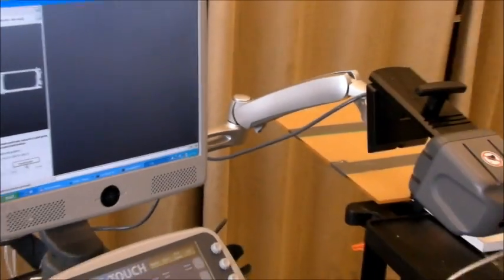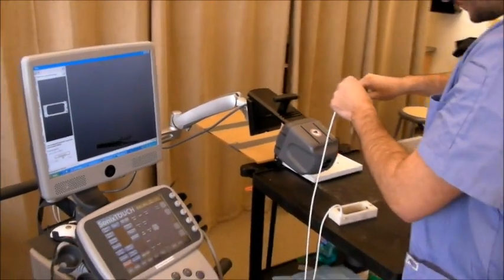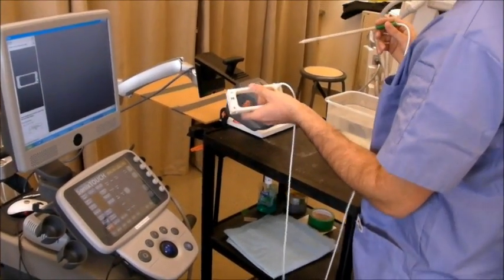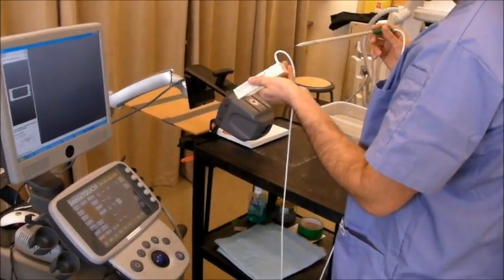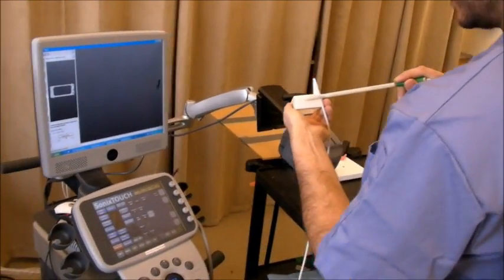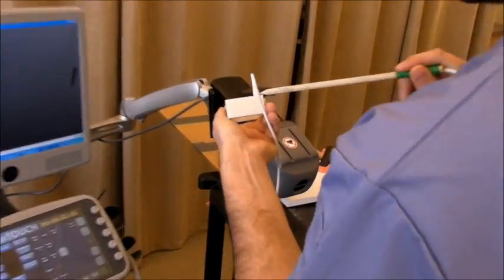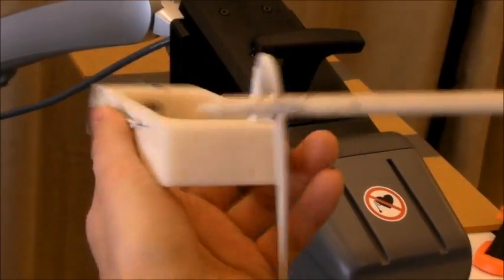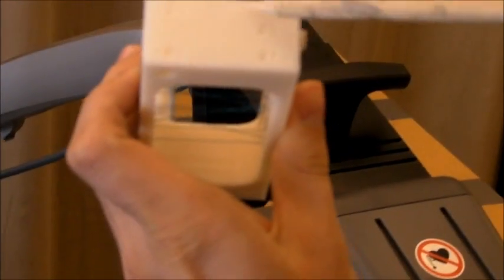For this, I have to touch eight landmark points on the Phantom. You can see number one, number two, number three and four, and four others on the other side.